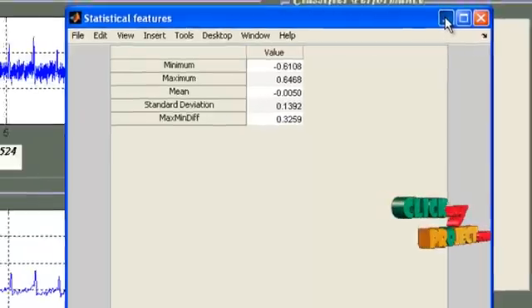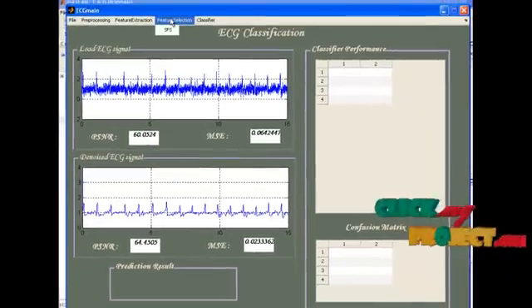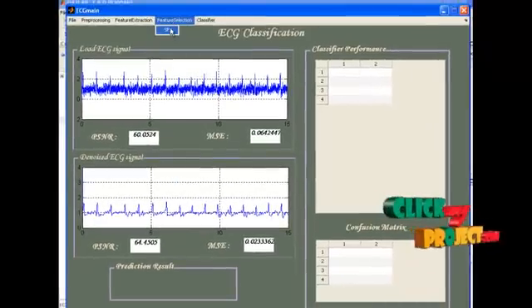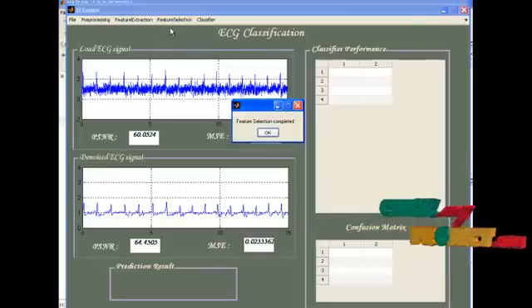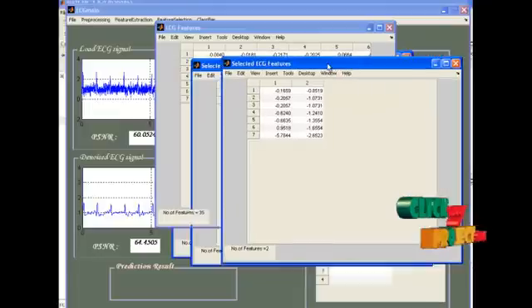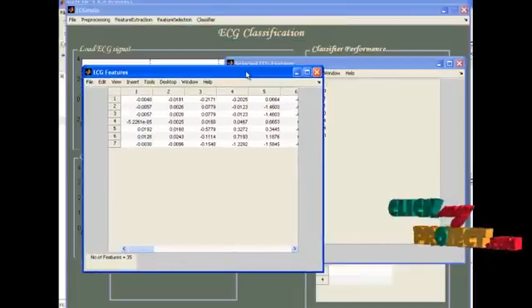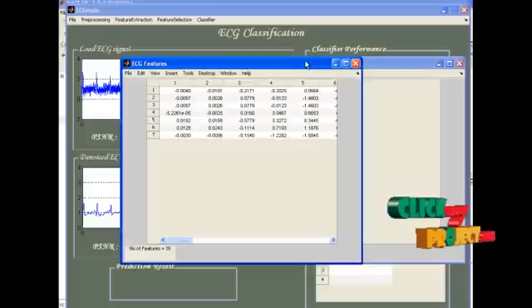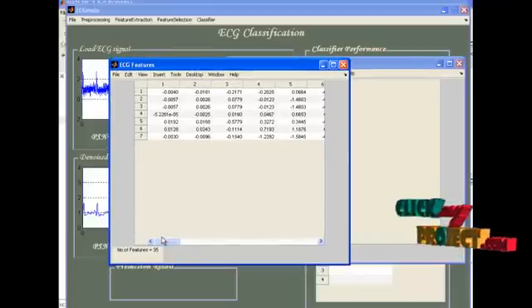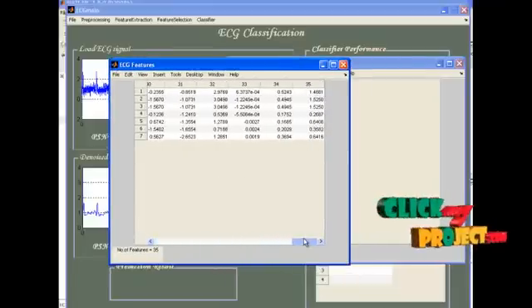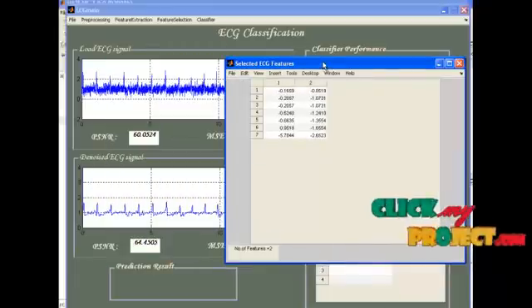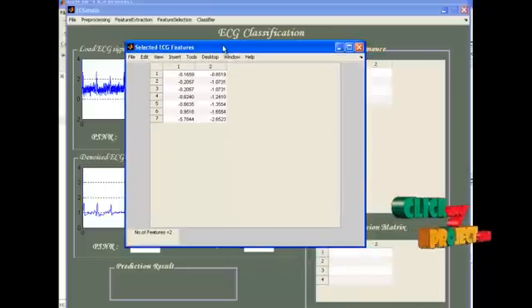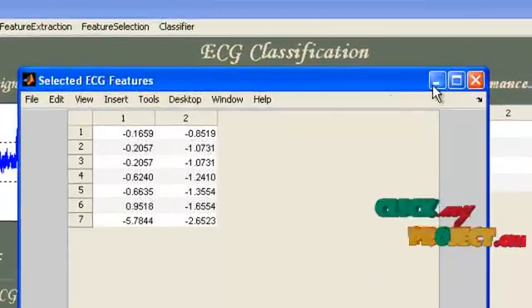Now, the feature extraction stage is over. Next stage is selection of best features from the extracted ones. Feature selection completed. Now, see the difference between the feature set size before selection and after selection. Before selection, the total number of features is equal to 35, a 1 x 35 vector size. After feature selection, the size is reduced to 2. The selected features are only 2.